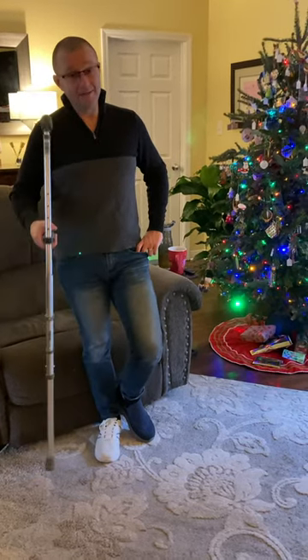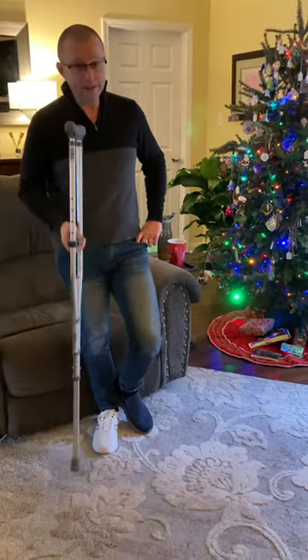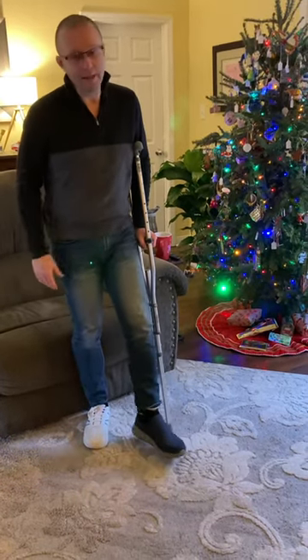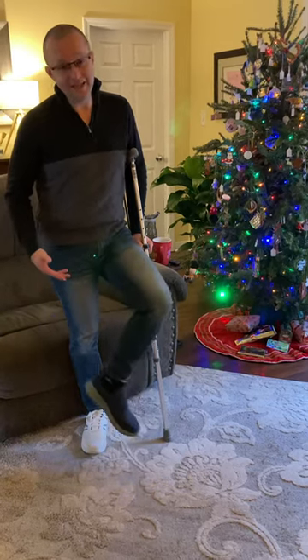So it's one crutch time. I used to always think that you put one crutch on the same side as the hurt foot. By the way, the shoes — they're just to designate the different feet.